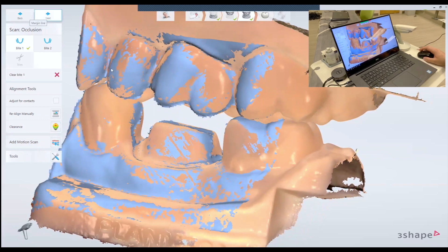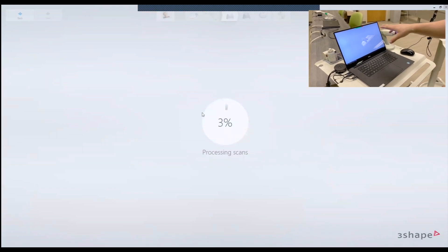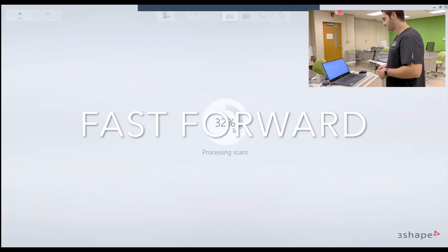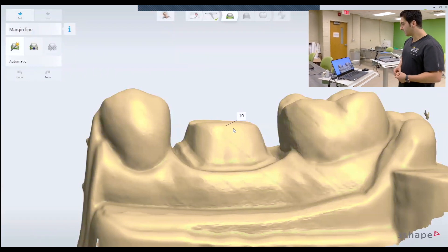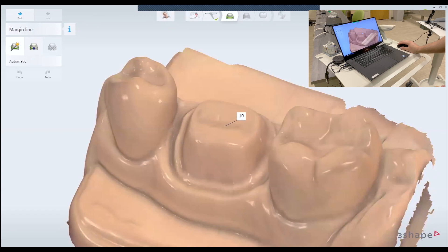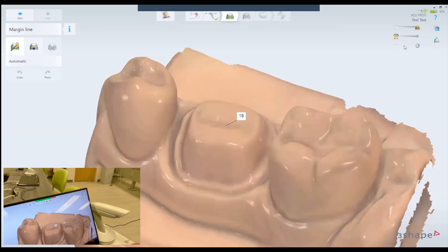Then go next. After this, it usually post-processes the scans — depending on how big the scan is, it takes from 30 seconds to two minutes. Now we're back and the scan will look something like this. If you want, in the clinic, you can turn the color off and on using this switch here. This is with color; this is without color.